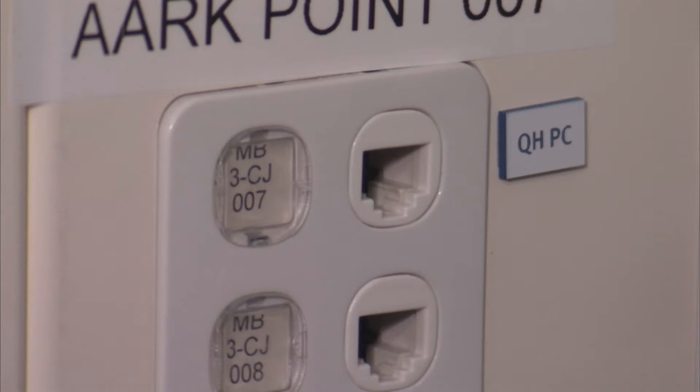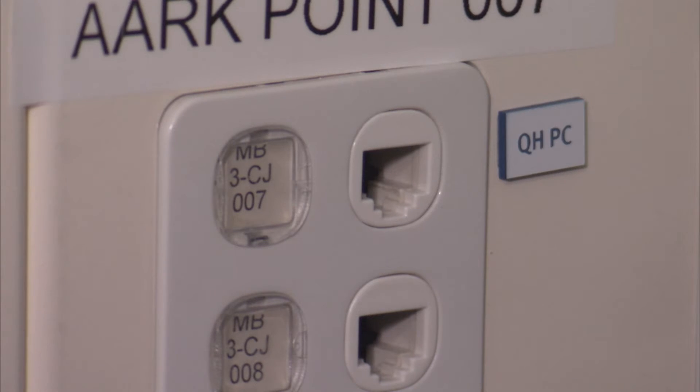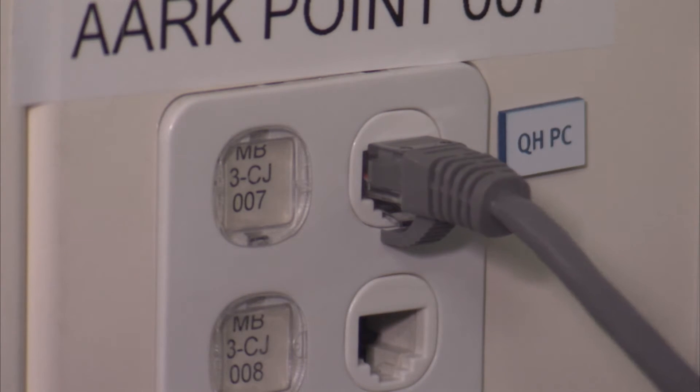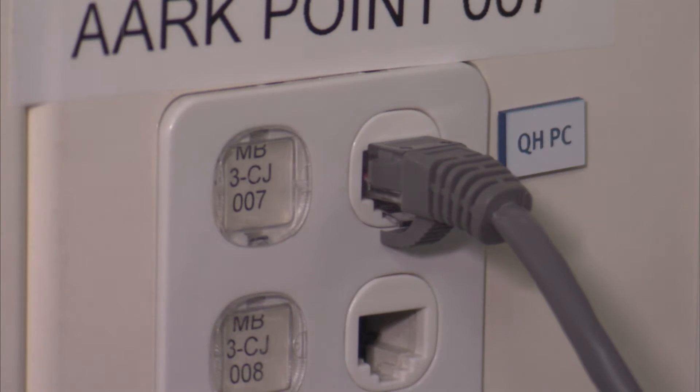To connect your WoW to the Cerner network, plug in the grey data cable from the WoW into the labelled Queensland Health PC data point.